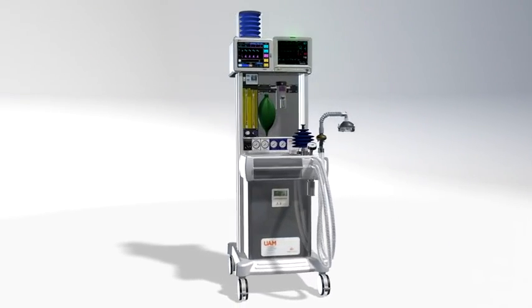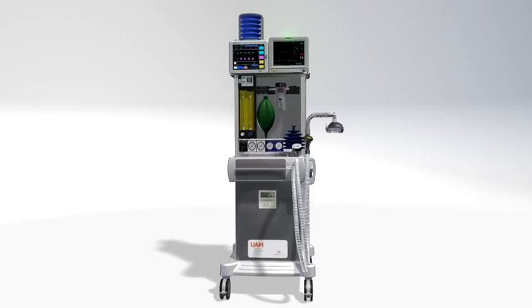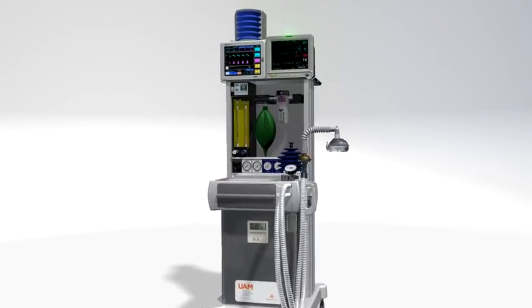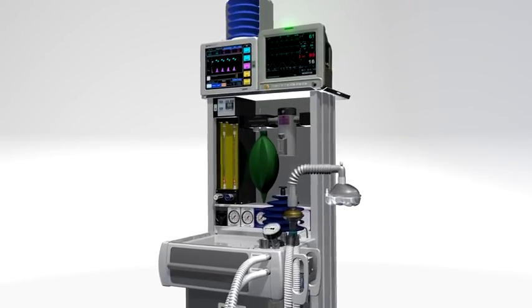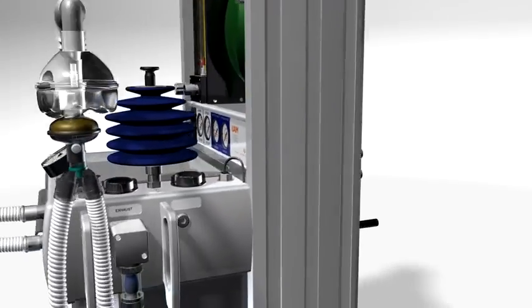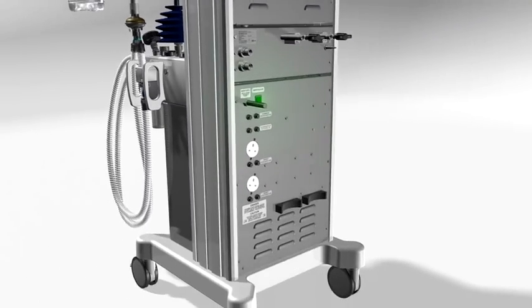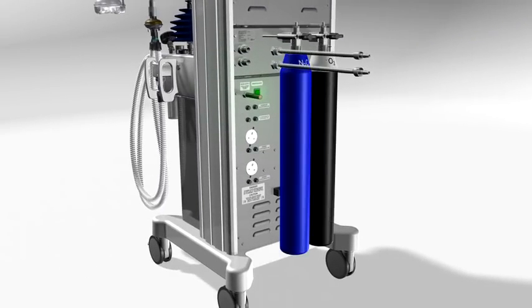The Universal Anesthesia Machine ensures that an adequate supply of oxygen and anesthesia is always available to meet patient demand, no matter what the environment. The UAM provides several ways to deliver oxygen, including connections for cylinder and pipeline.